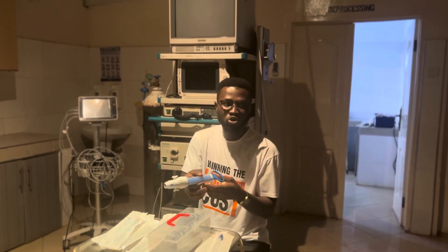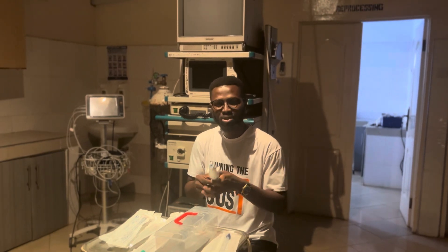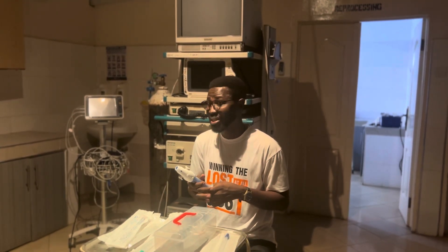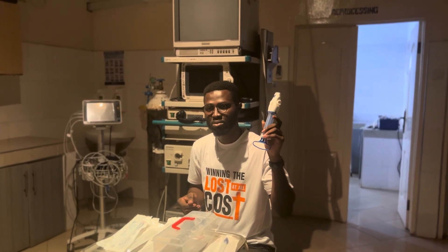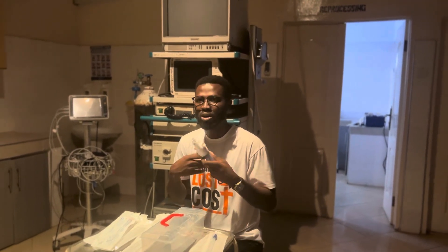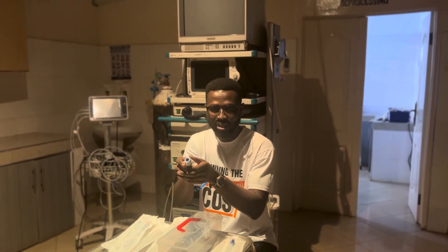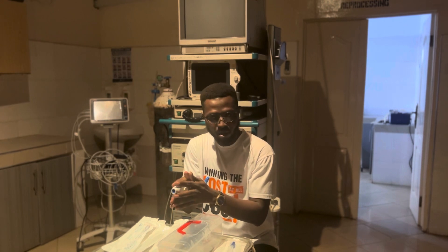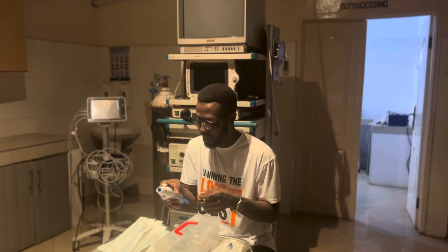The precautions to observe when using this instrument are important, and they may test your rotation through the procedure and the gynecology department. You also need to know the cylinder size, which has been calibrated to help you know the amount of evacuation that has actually been done. You can be asked to disassemble or assemble the kit, or actually be asked to perform the procedure.